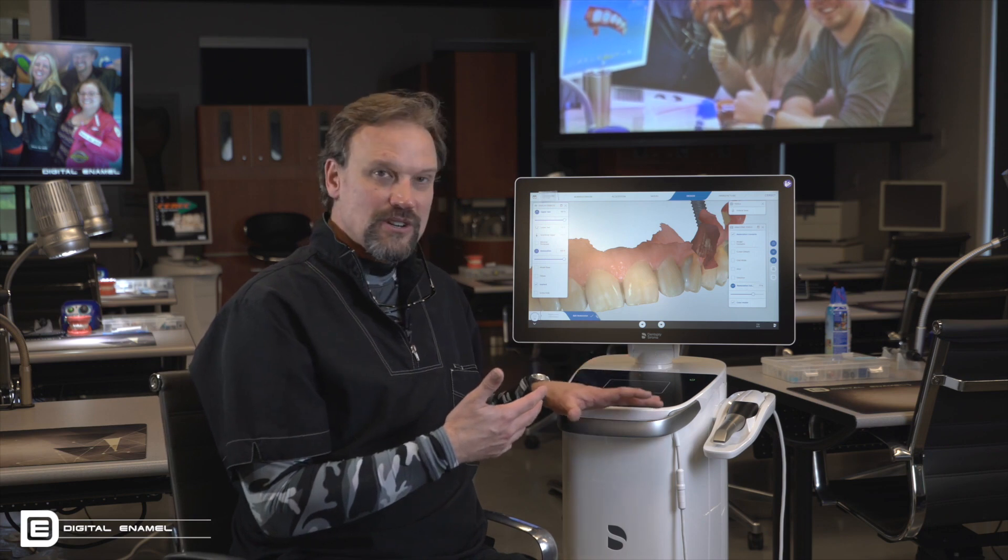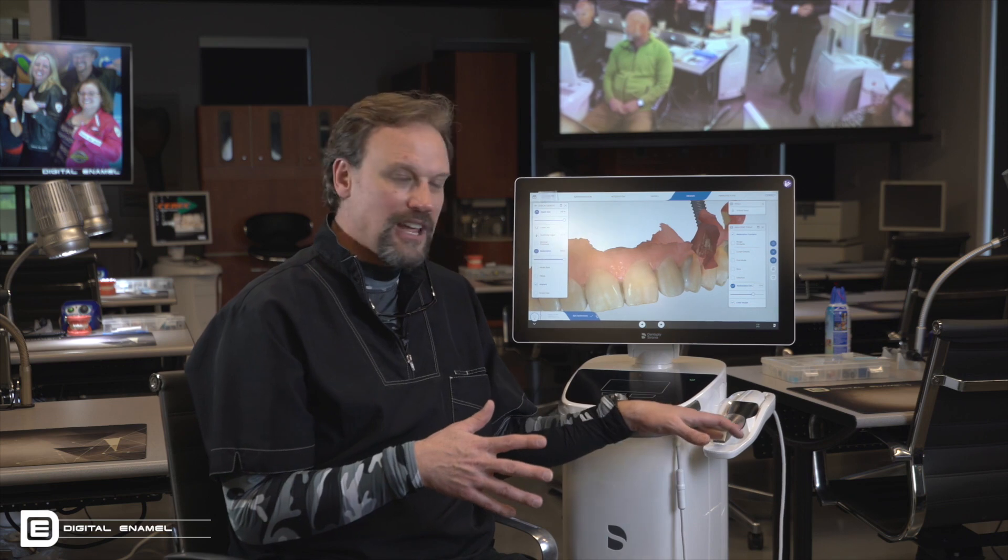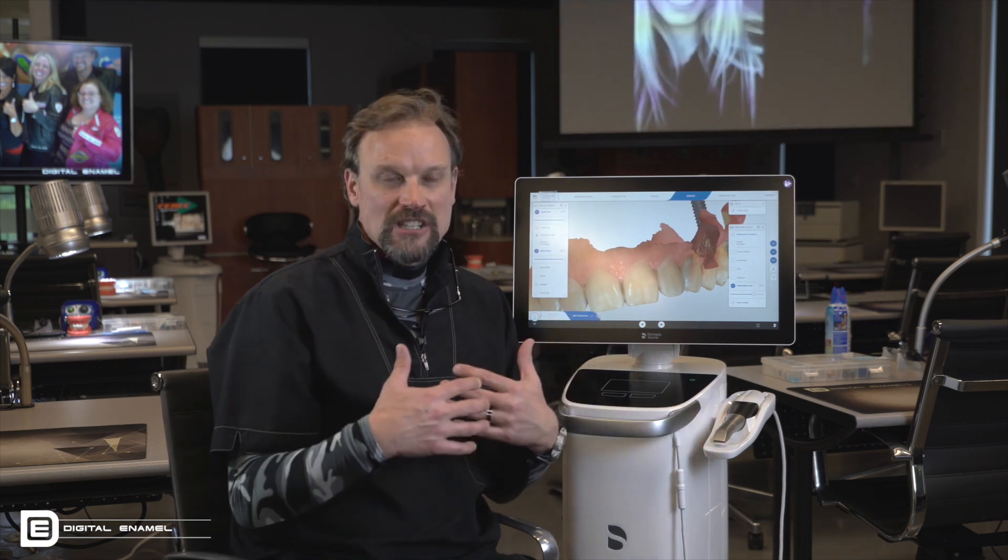We have had our CEREC machine on battery power sitting there all day not doing anything. That doesn't mean I could run the camera all day long — the camera uses a lot of the energy. In my experience, I've been able to use CEREC all morning on a few patients, scan all three of them, and then at lunch I've got to remember to plug it back in so it can be ready for the afternoon. Experiences will vary.